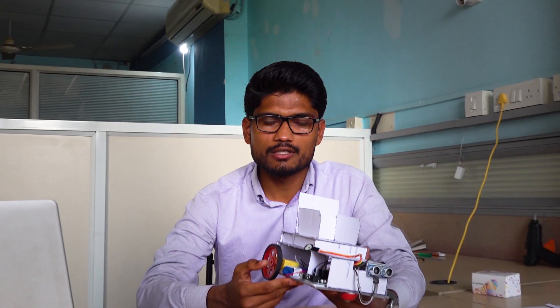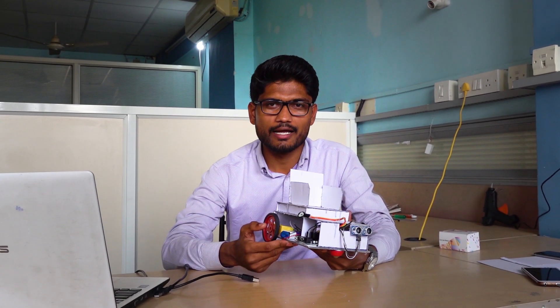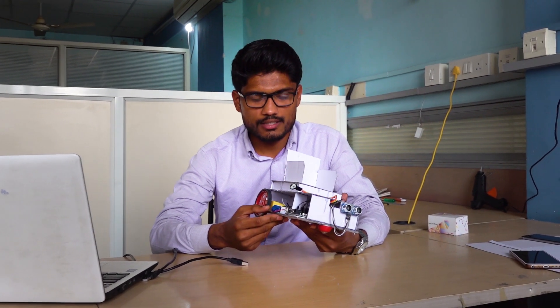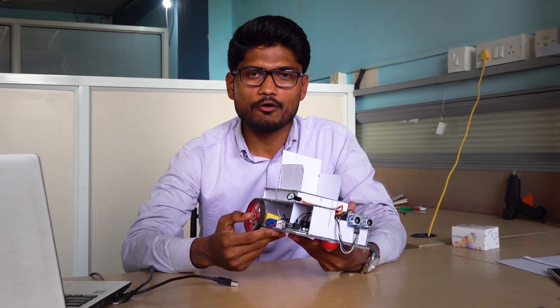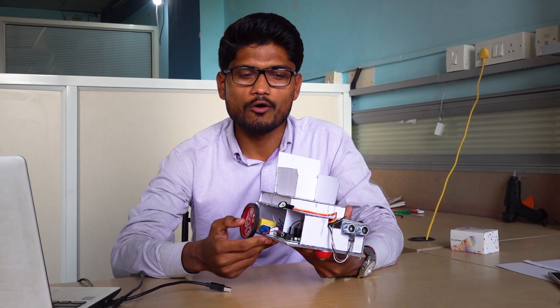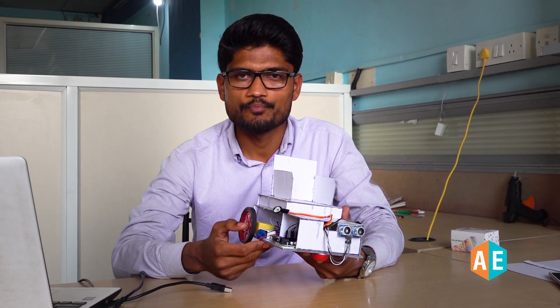Hello, this is Smart Wheelchair Student Project. This wheelchair can be controlled using an Android application and voice commands. This is particularly for the physically handicapped people who can't walk and have to be on the wheelchair.